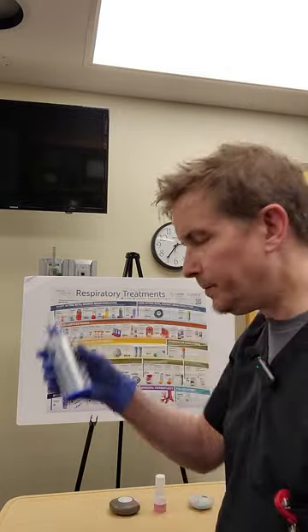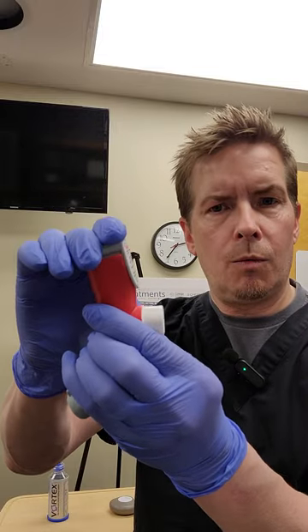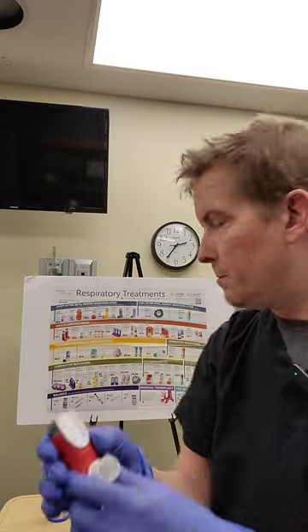We're going to start with the metered dose inhaler. It's a device that has a propellant in it — it's pressurized — so once it's actuated the med comes out at a decent velocity. That's where the spacer comes in. It doesn't matter who makes it, as long as it's a spacer, and it creates distance between the device and the patient's mouth and oral palate. Without it, most of the med gets stuck to the back of the oral airway. Whenever you're ready, uncap it, give it a nice shake, put it in the spacer, and one actuation. That's the metered dose modality.